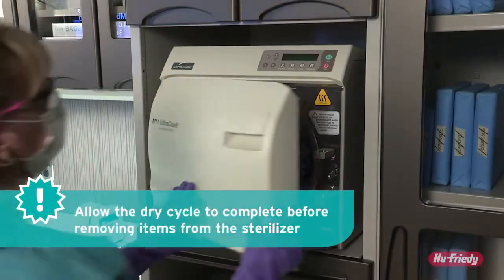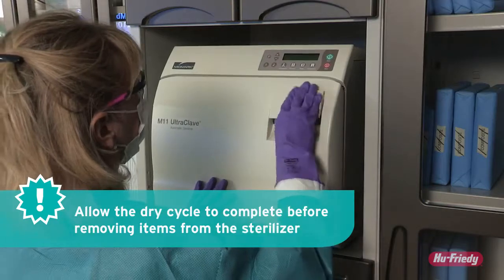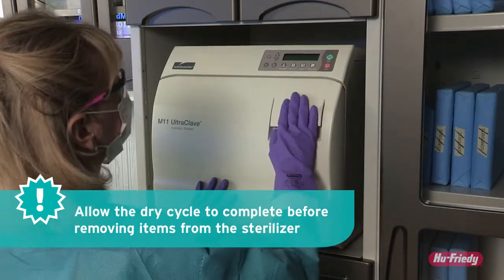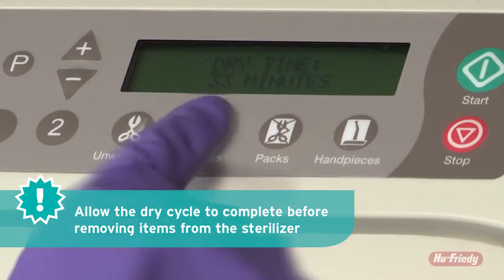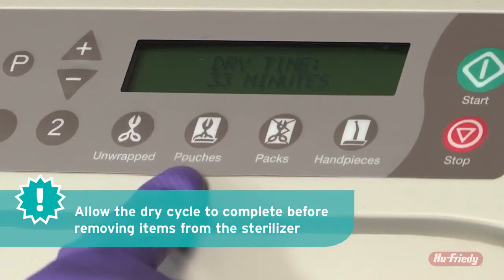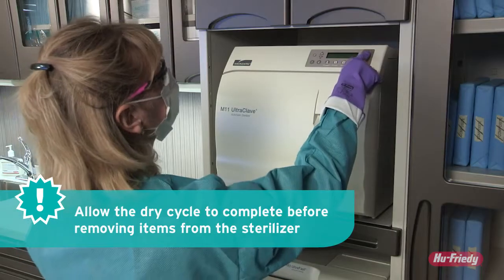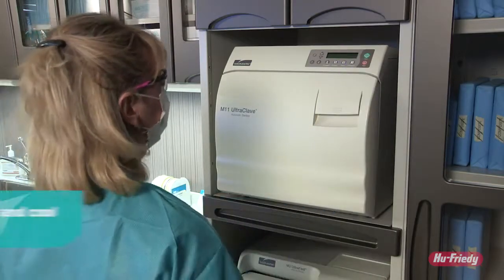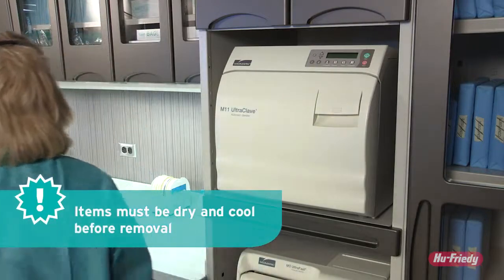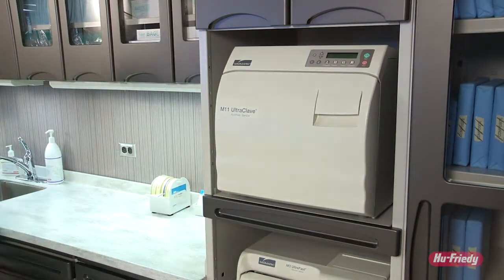Follow manufacturer's instructions to confirm the cycle type to use for cassettes. Allow the sterilizer to complete its cycle and do not remove cassettes or pouches until the dry cycle is complete. All packages should be completely dry and cool prior to removal.